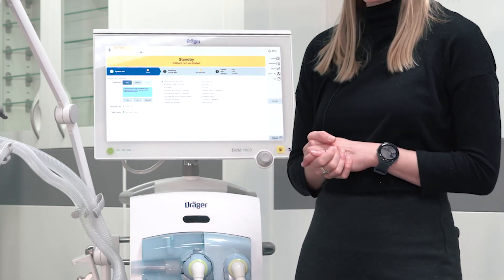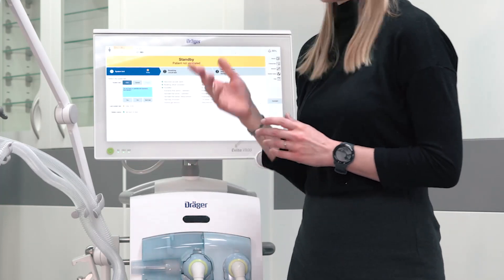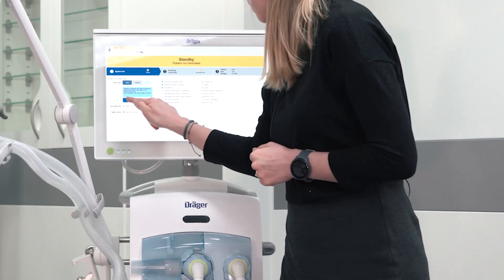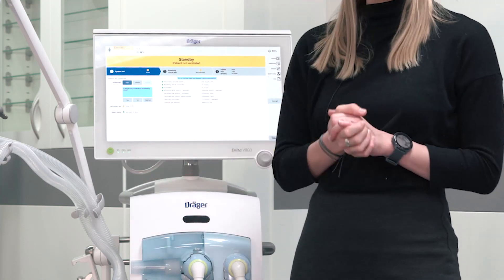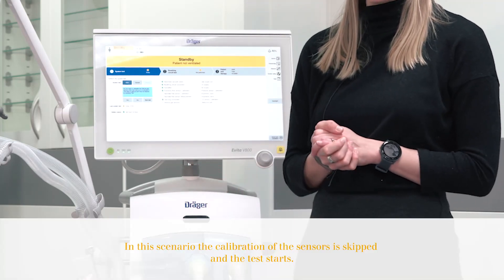Acknowledge the alarm. Check whether the breathing circuit and the humidifier, if used, is correctly assembled. Perform the calibration of the expiratory flow measurement. If you use a neonatal flow sensor, you can directly calibrate that here. If you do not use a neonatal flow sensor, you can directly skip these test steps. Ensure that the test lung is correctly connected. Every three months you have to calibrate the internal gas sensors.